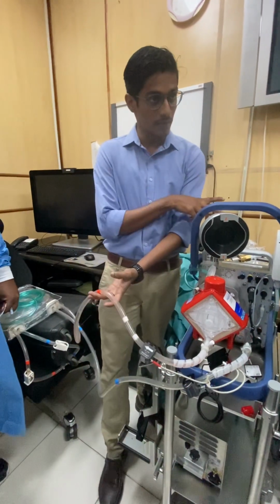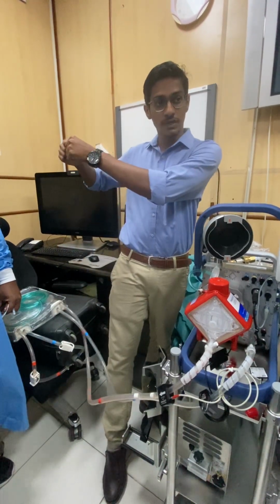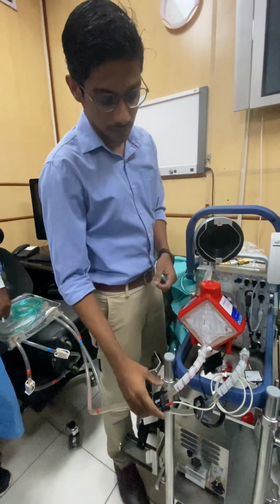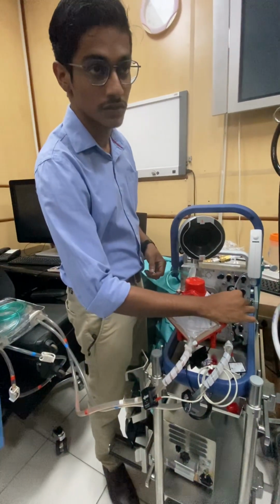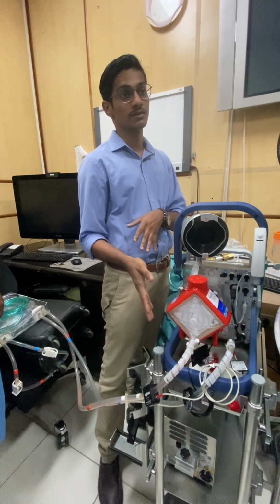इसमें we have to stop the pump, clamp, and just फिर इसको निकालना पड़ेगा. Just open the cannula side. You can tap it. The air will go to the upper part. Or whether, for example, if this pressure monitoring is not working, then you are trapped because you will not get any pressure of this device.